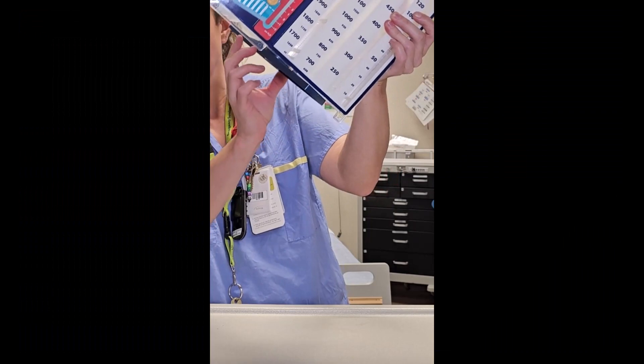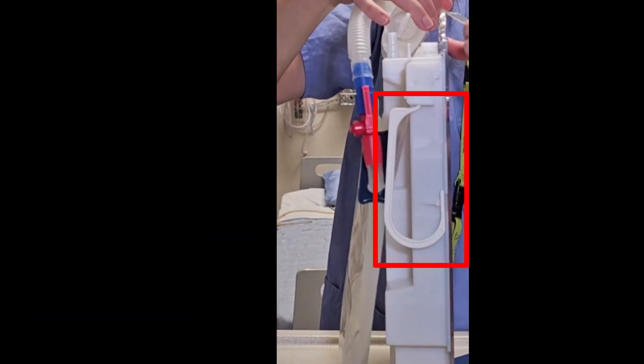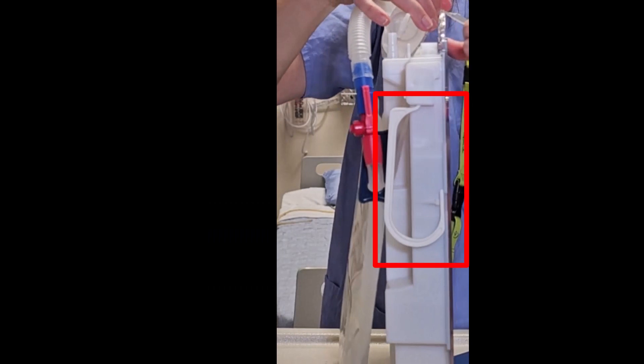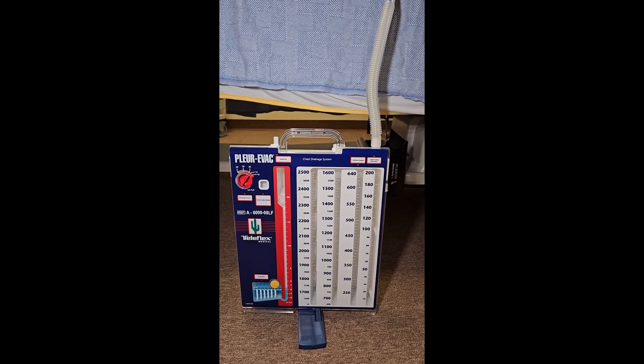If you're using the floor stand, you can simply turn it to click it into place, or if you're intending on hanging it from the bed, there are hooks on either side of the unit to be able to do that. But you do want to make sure that you locate it below the patient.